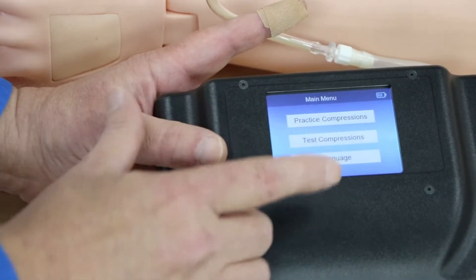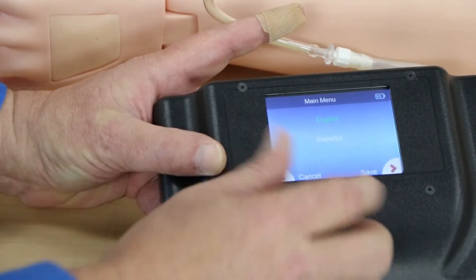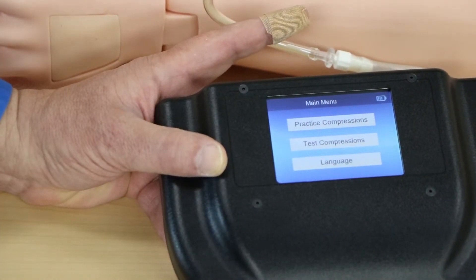We have three buttons. One is the language button. You can choose English or Spanish. You can make the change and press save, or just simply hit cancel — that will kick you back out to the screen without saving anything.